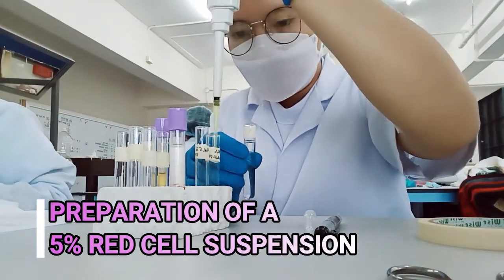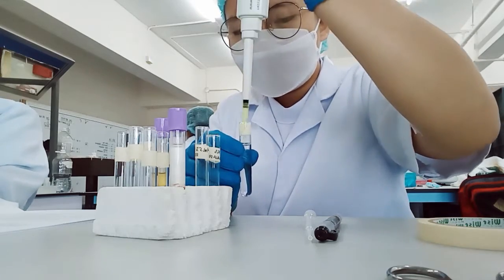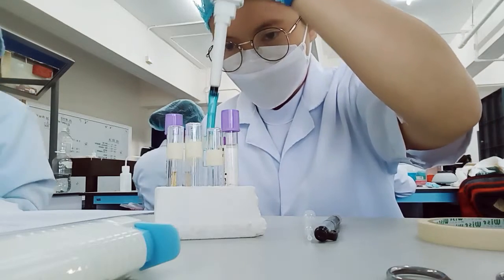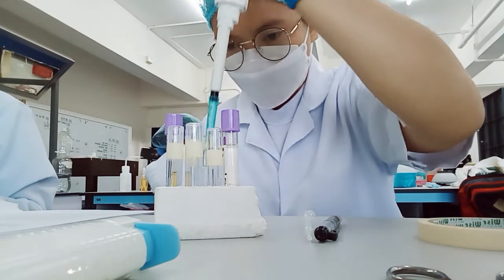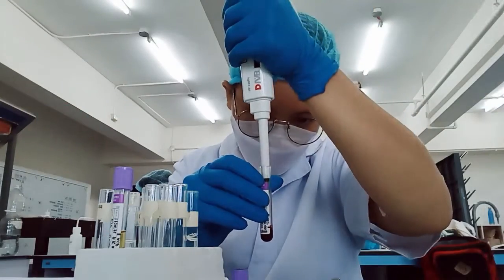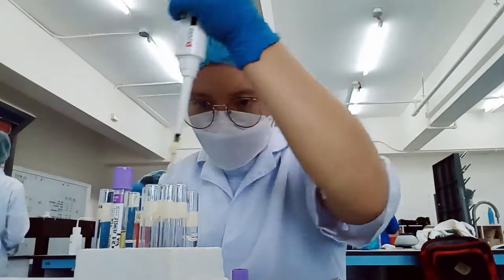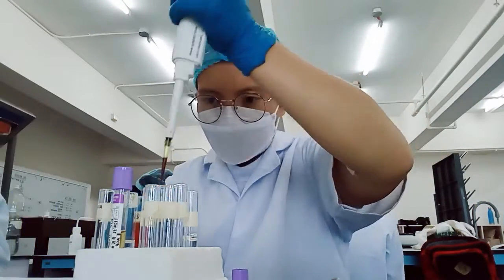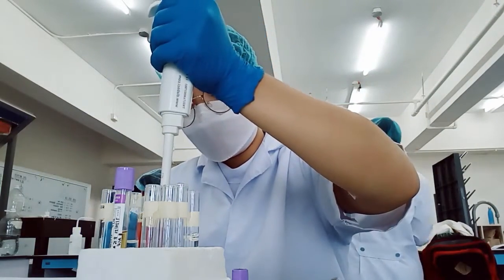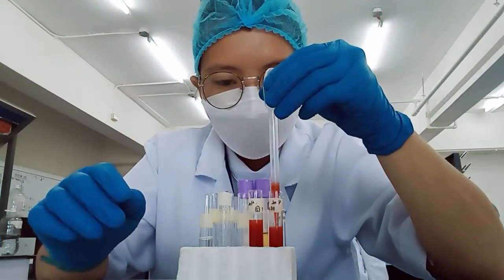Preparation of a 5% red cell suspension. After washing the red cells, transfer 3.8 ml of normal saline solution on 2 tubes. Then add 200 microliters of the washed red cells to tube 1 and tube 2. Then thoroughly mix the red cells using a pipette.